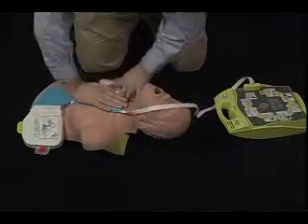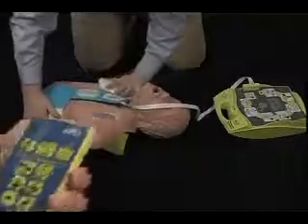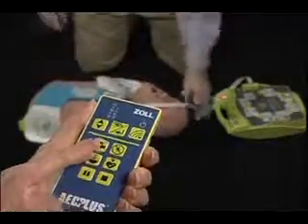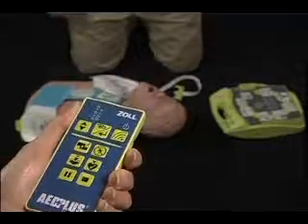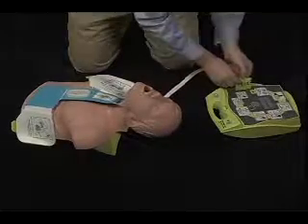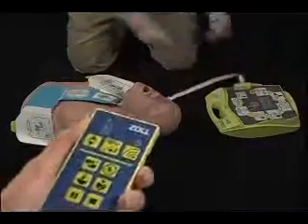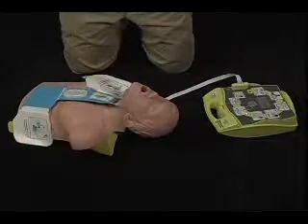During a heart analysis, you can push the pads button once to simulate a broken connection to the patient's heart. Analysis halted. Check electrode pads. Push the pads button a second time to simulate reconnection of the pads and detection of a heart rhythm.